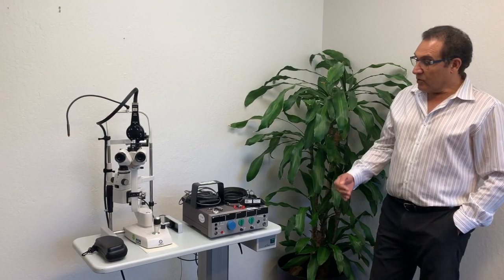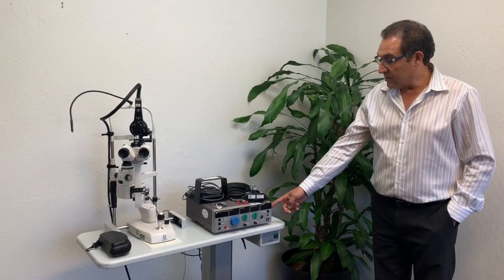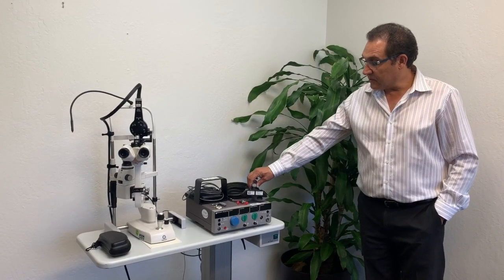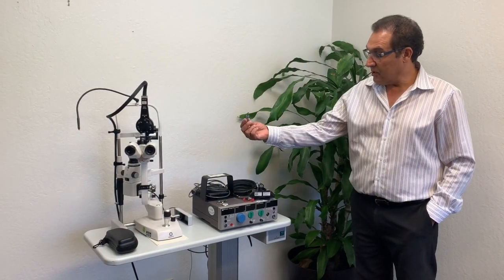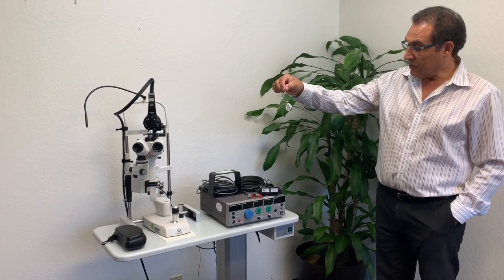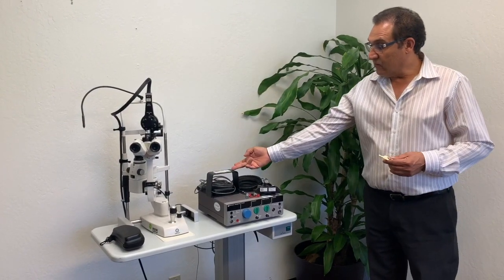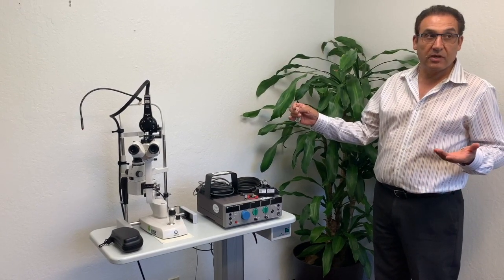In order to have a system here, we have a laser console — the SLX. We have an indirect, and we must have an interlock key, a standard on/off key, and a foot switch. If you don't have one of these items, you will not be able to set up the laser.